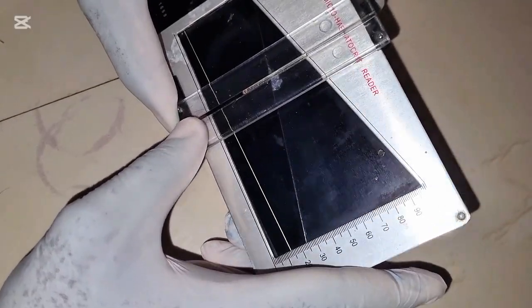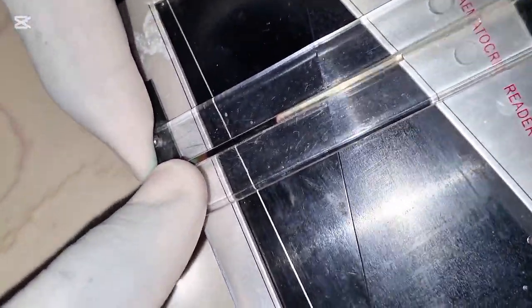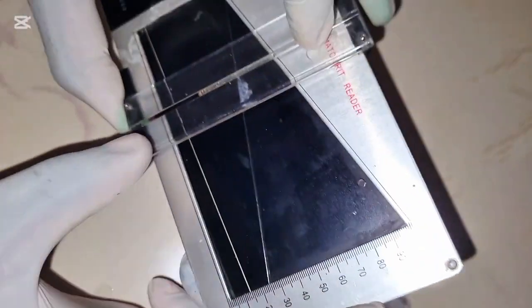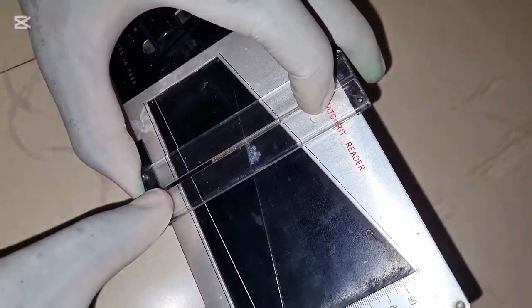Okay, we are there now. So you see that the part containing the red blood cell is touching the 0 mark. Now, the part that has the plasma is also at the 100 mark. This is when you know that you have placed your PCV capillary tube very well.